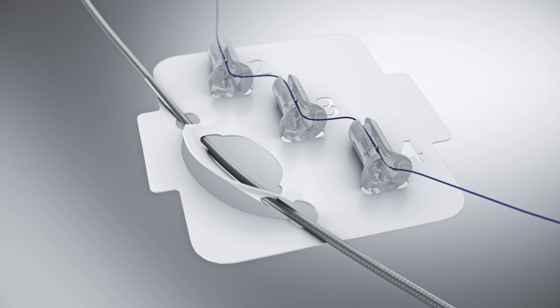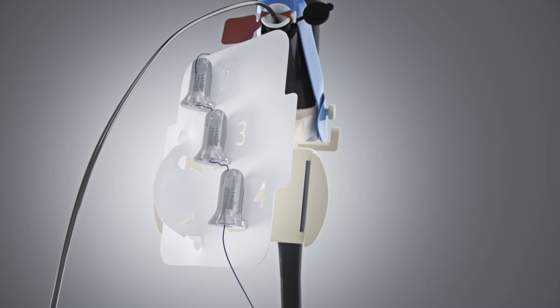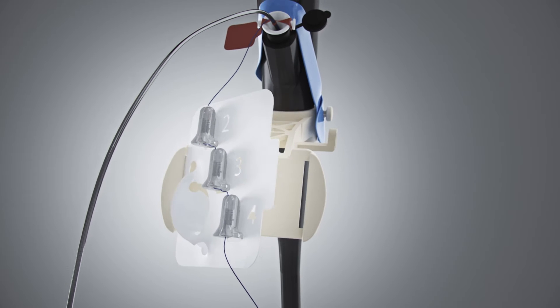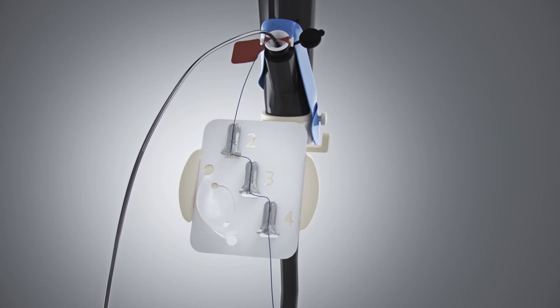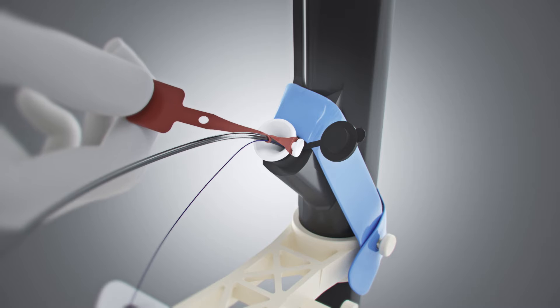Remove the X-TAC backer card from the device catheter by folding the tab towards the helix tacks. Position the backer card with the number 2 proximal and attach by inserting both side tabs. Pull on the red scope liner clamp to release.